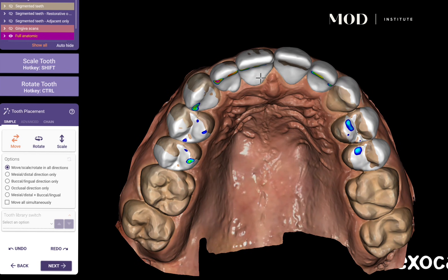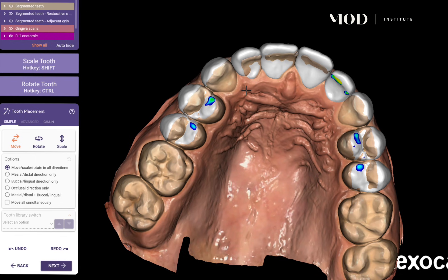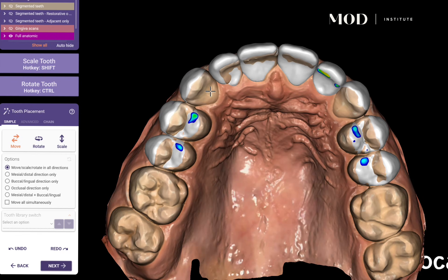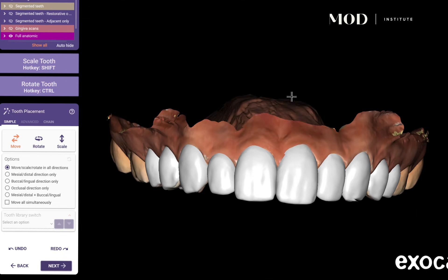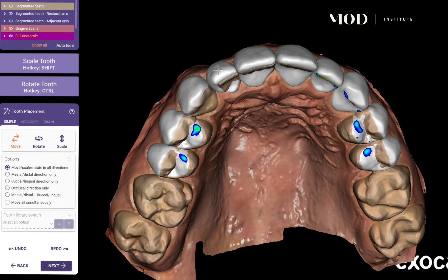Now I'm in the tooth placement tab. This is a no-prep, min-prep case, so I'm just going to push these teeth ever so slightly facial — we're talking about 300 microns or less — using some resize tools to manipulate the library teeth, which are now direct copies of the patient's natural teeth.